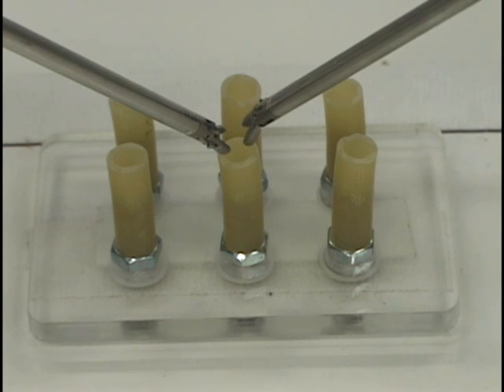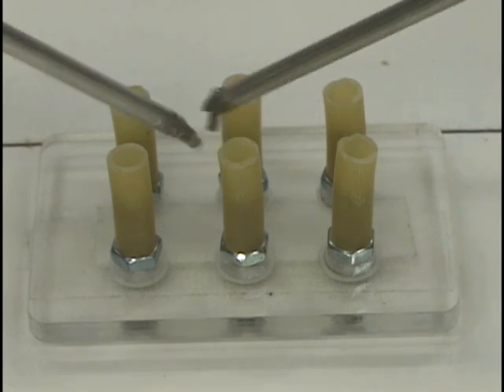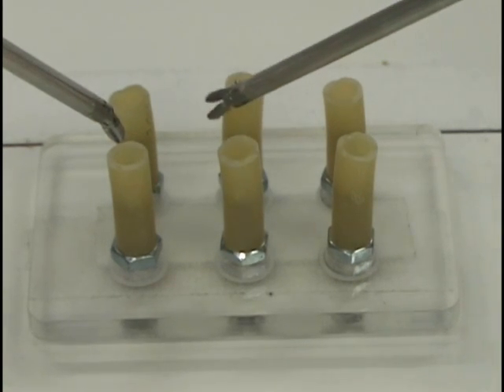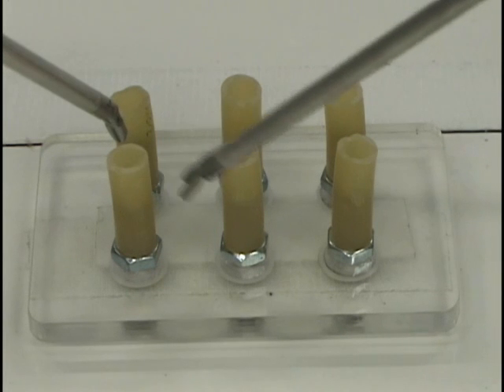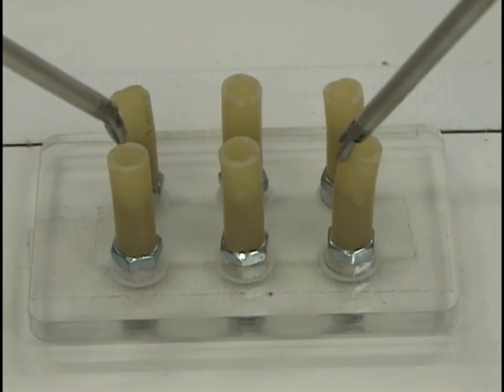Use your dominant hand to touch each of the six rubber pegs, starting with the far left, moving across the far row, then the near left, moving across the near row. Note your position in space by using lighting cues, such as shadows. You know you are not yet touching an object if you do not see it deflect or deform.